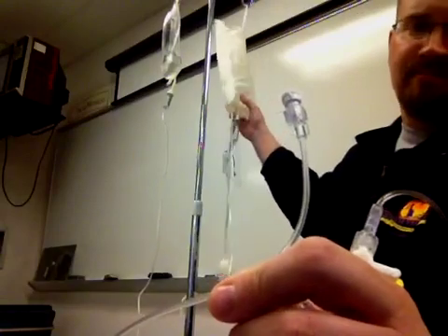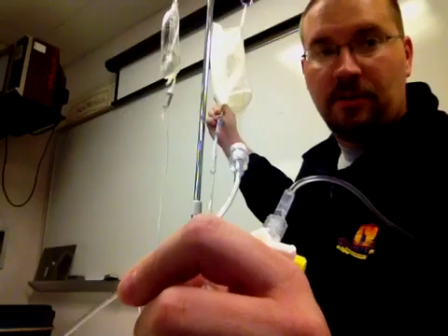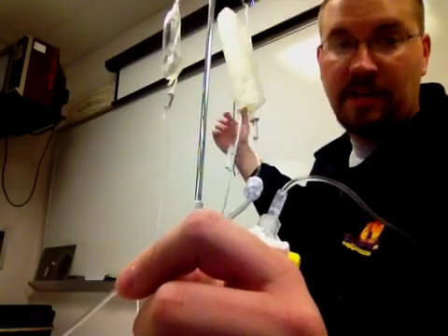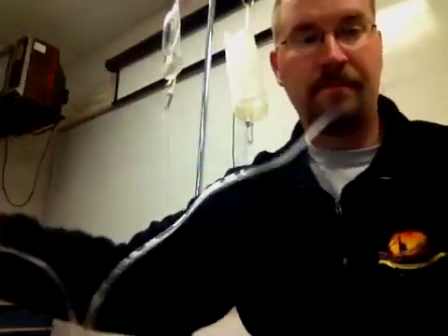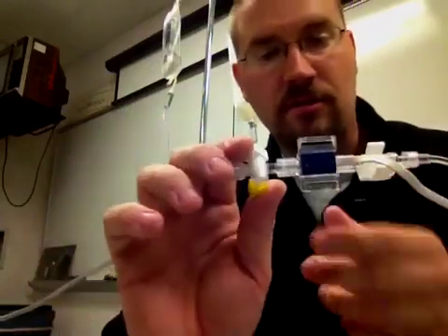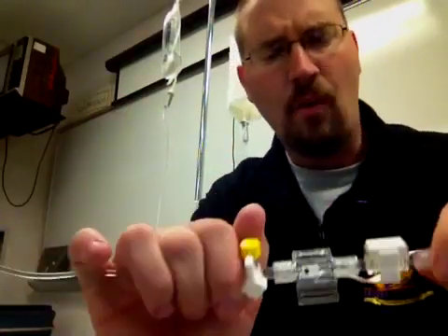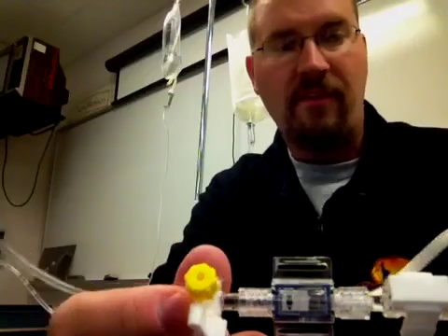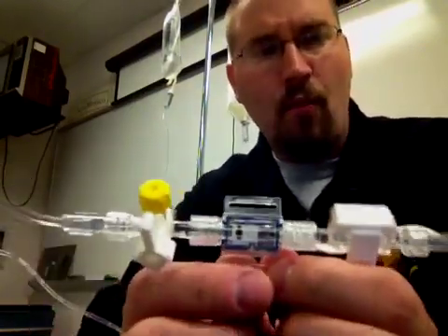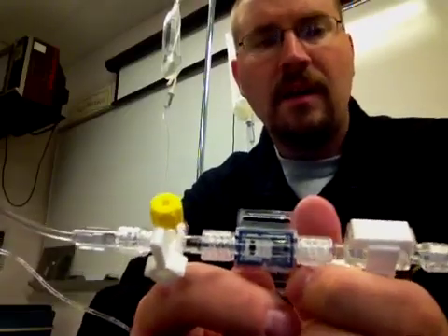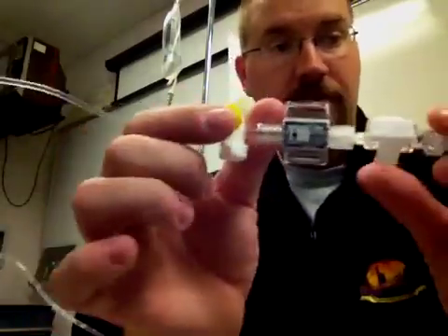In this case, it'll be a solution, generally normal saline. Some places are still using heparinized saline solutions. That wave of pressure is going to travel through this line until it gets to this transducer here. What happens is that wave of pressure slams into this transducer and that wave is then essentially transformed into an electrical signal.